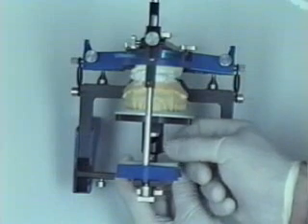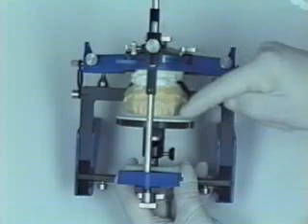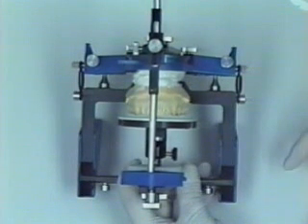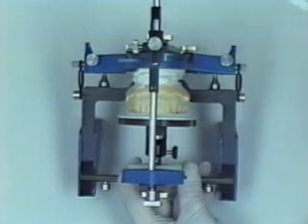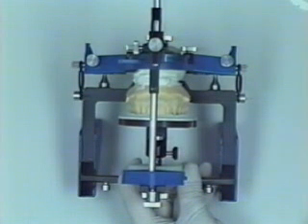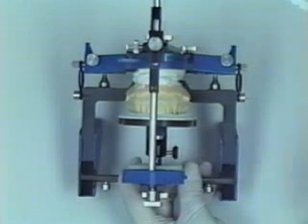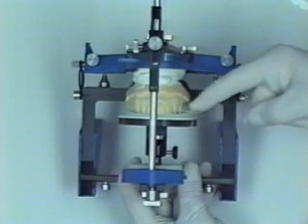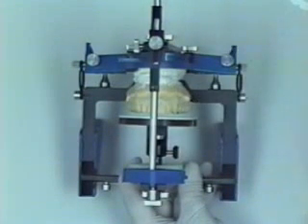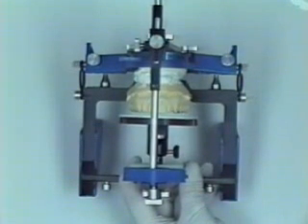The set screw is then tightened, and now the technician can see exactly what change is necessary in the entire maxillary occlusal plane to accommodate the change. This provides simplified communication to the laboratory technician or as part of a diagnostic protocol to other disciplines — for instance, communication with orthodontists, orthognathic surgeons, and the ability to create harmonious and symmetrical tissue levels with the periodontist. All can be communicated now.